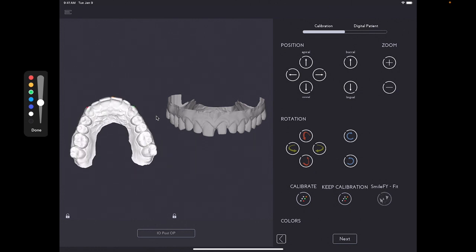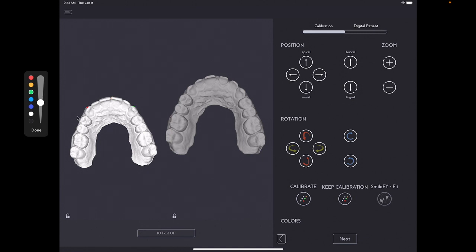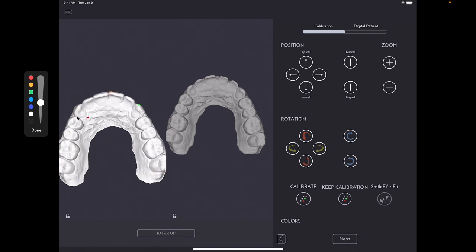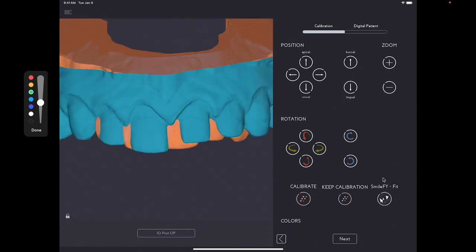So here we will do three points, but now on the palatal area. So basically you would just turn those two files into an occlusal view. And then you will set three points, somewhere here close to the palatal area of the canine. Then right here in the middle of the STL. And then another one here close to the canine, kind of like creating this triangle. And now let's do the same thing on the other side.